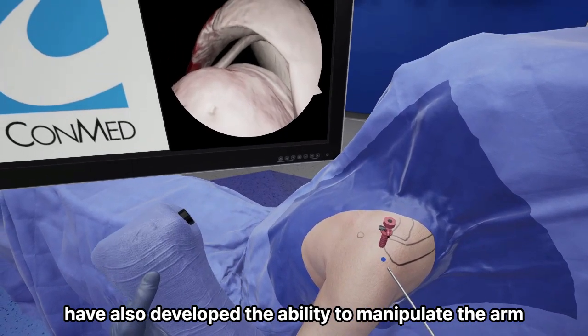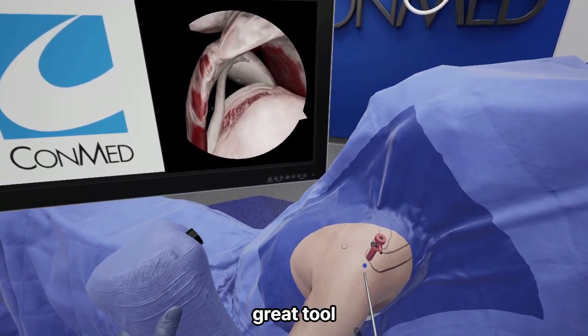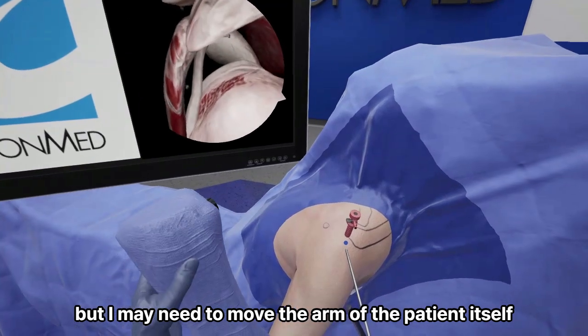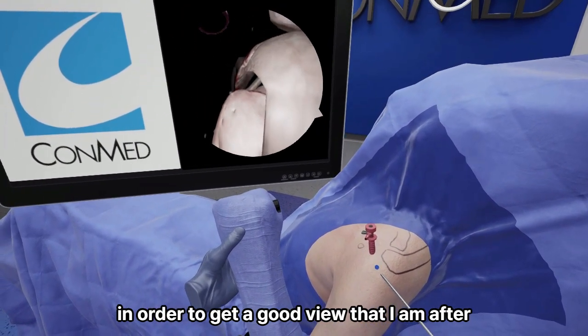We've also developed the ability to manipulate the arm. It's a super great tool to allow users to really get a good sense of how not only do I need to drive the scope, but I may need to move the arm of the patient itself in order to get a good view that I am after.